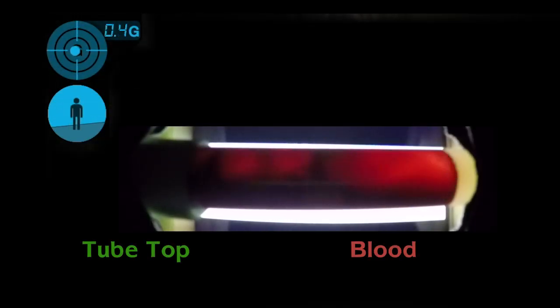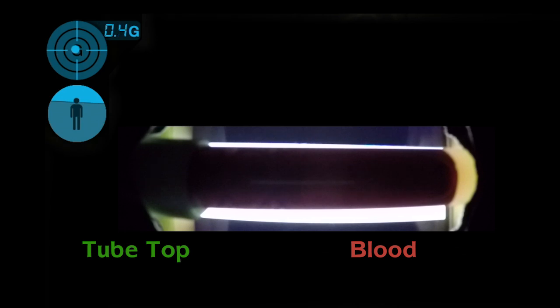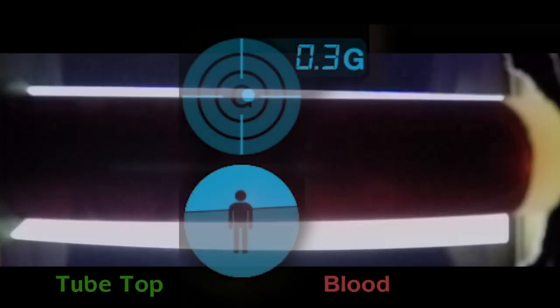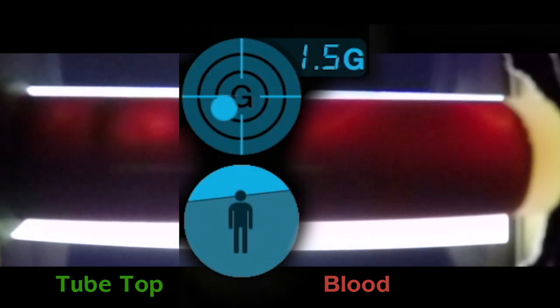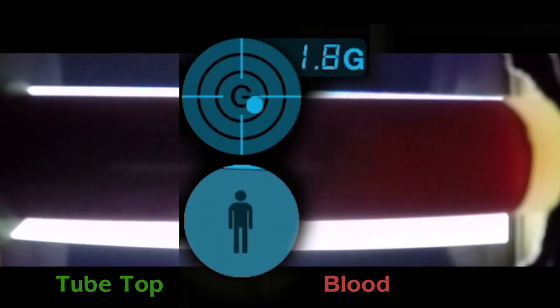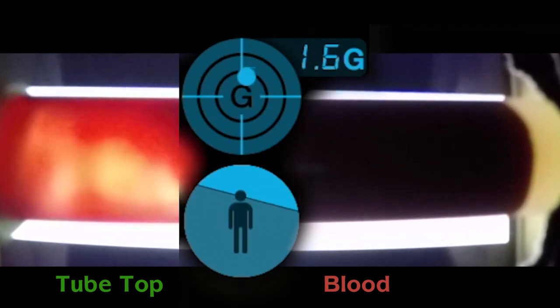The app actually recorded the exact g-forces — about eight times the force of gravity. What we found when we sent the phones through the different tube system routes was that the travel time was much longer in the route in question, and the time spent under force was causing the red blood cells to break open, which gave us an error in our result.